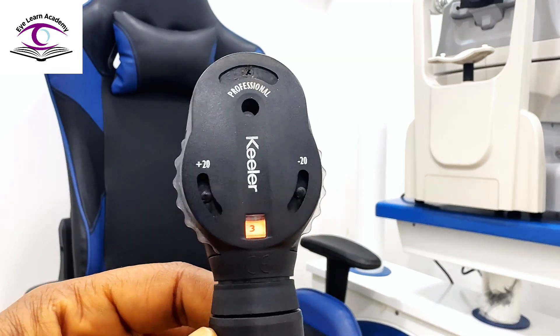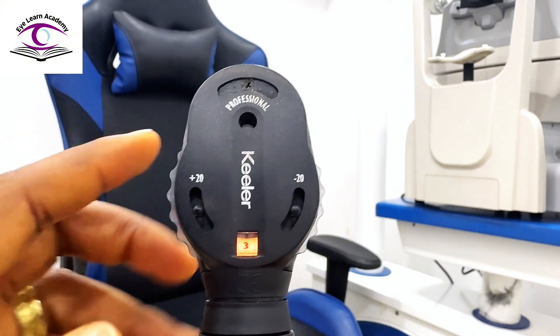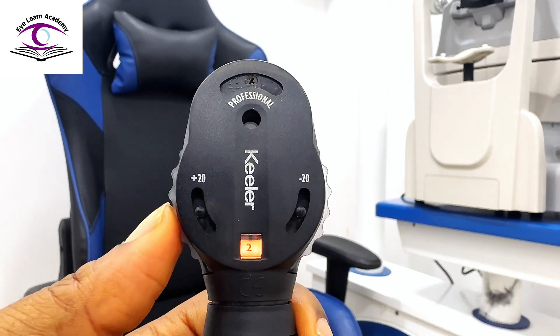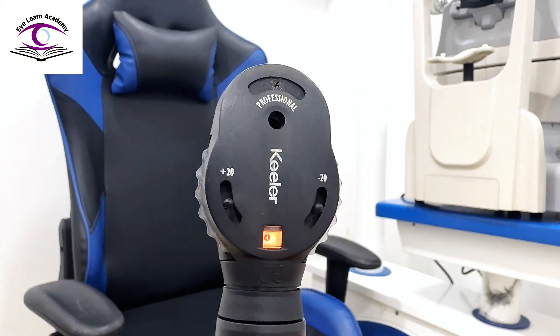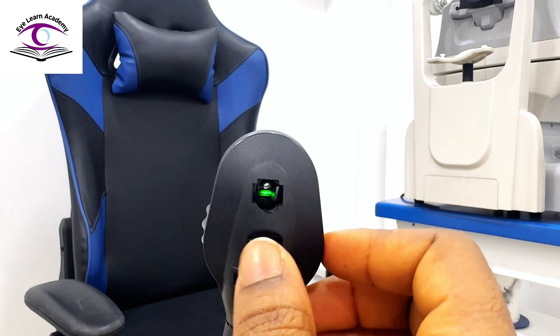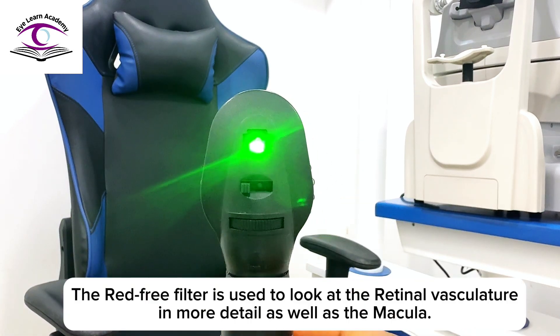That light I showed is where you shine into the patient's eye. This is the power diopter display and this is the power dial. You use it to select the lens to use. The red lenses are the minus lenses, while the black lenses are the plus lenses. This is the filter selector knob. You can use it to select the filter you want to use: the white beam, the medium beam, the small beam, the grid, and the slit.